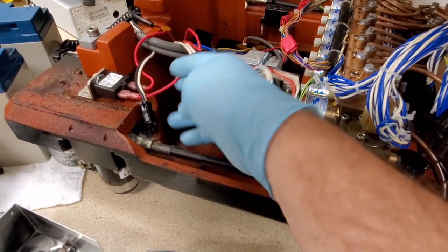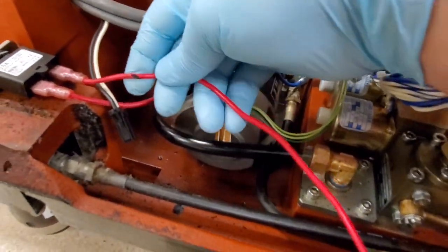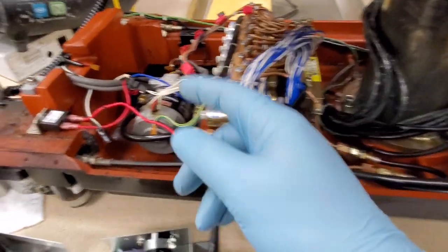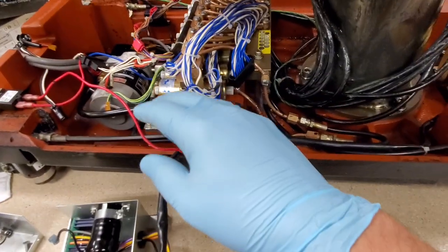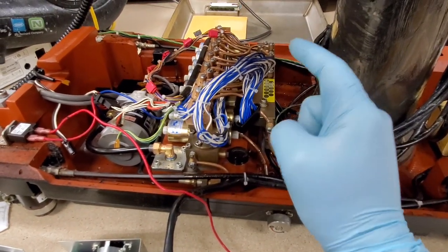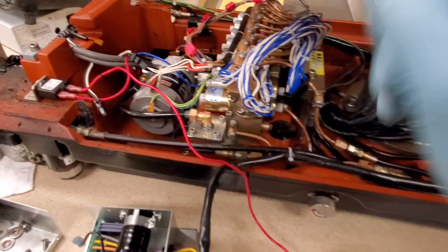All this was bundled up together. Some of this is damaged — you can see damage on a bunch of other wiring. Here's the problem: I had a short with 22 volts AC which shorted into my 120 volts inside this cable, and that went throughout the table. Luckily, a patient wasn't involved. This happened when they were moving the table into the room — they plugged it in and that's when it started smoking. It was one of those situations where if it was going to happen, it was an absolute blessing that it happened when it did.